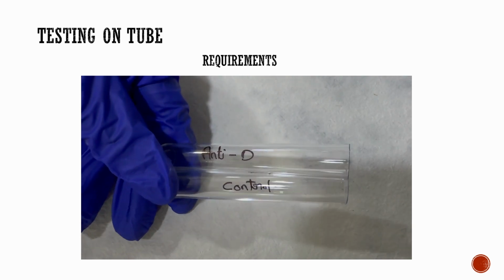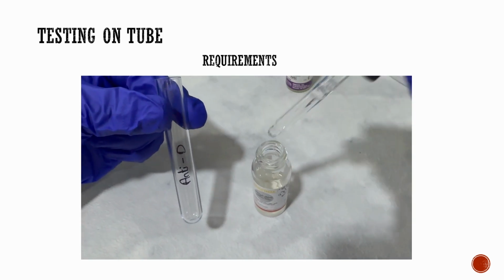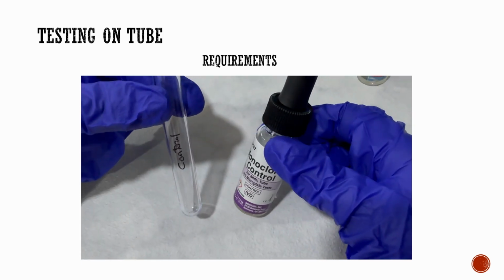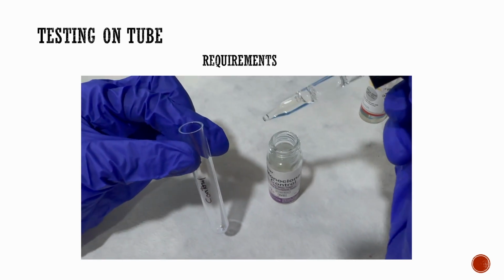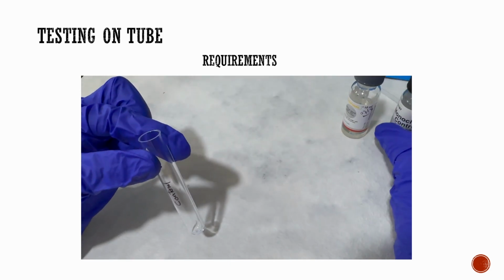Now coming to testing by the tube method for anti-D. Here we have two labeled tubes, anti-D and control. Add one drop of monoclonal anti-D reagent to the labeled anti-D tube, and one drop of monoclonal control to the corresponding labeled tube.